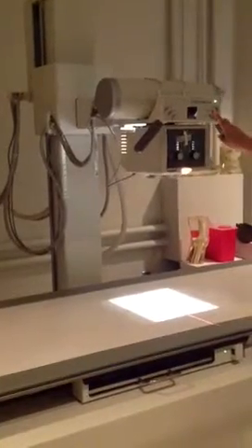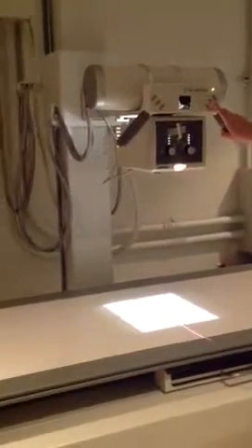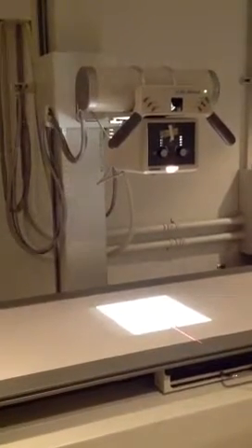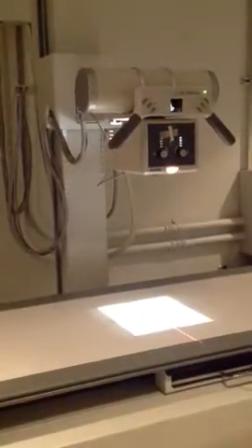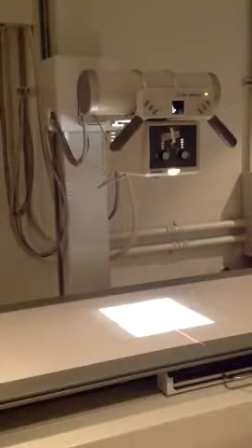Now typically when we're talking about the head end or the foot end of the table, we are talking about the head of the patient being on the left side of the technologist when standing in front of the table, and the foot end will be to the right side of the technologist. However, each clinical site designs their x-ray room according to their specifications, so it may be different depending on what clinical site you're working at.